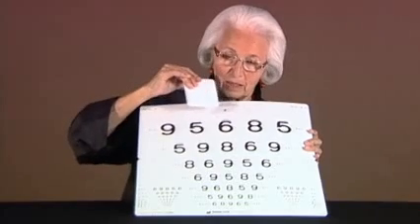The technique is the same as always. We first check that the person can tell the numbers, or use a sign, and there are also answering cards available for this test.